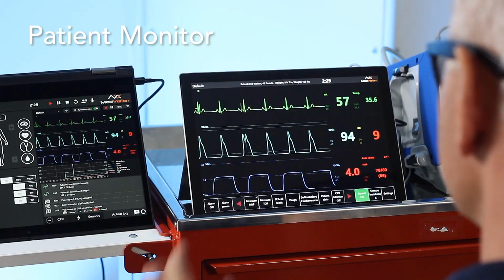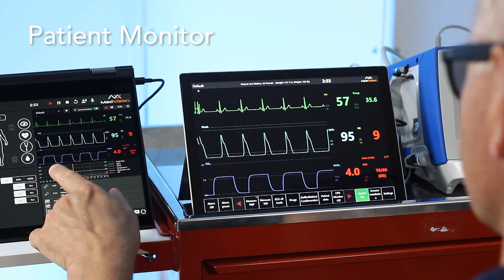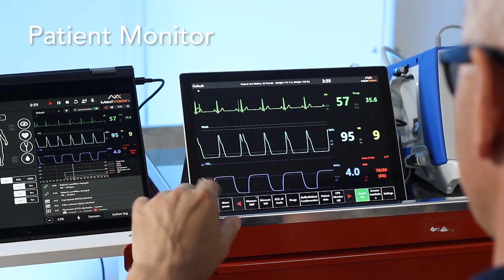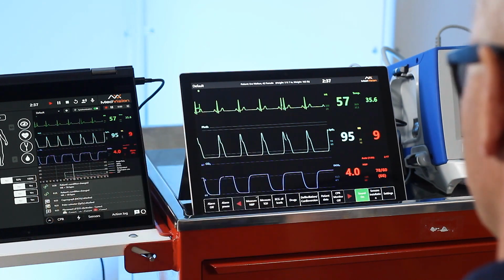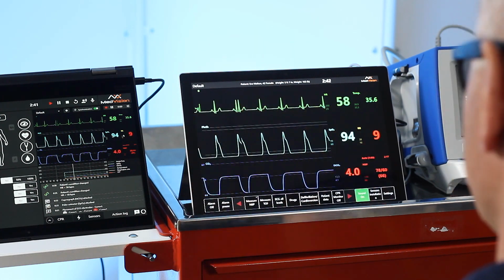What we'll do now is move on to the patient monitor to show you some of the features and functions that you can display for your candidates to view. As you can see, this monitor layout is representative of the instructor one. So whatever I see, the candidate will see. Change your parameters on the instructor application, and they are replicated within the patient monitor.